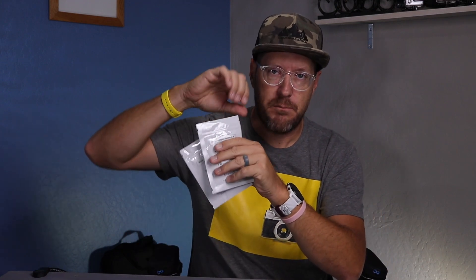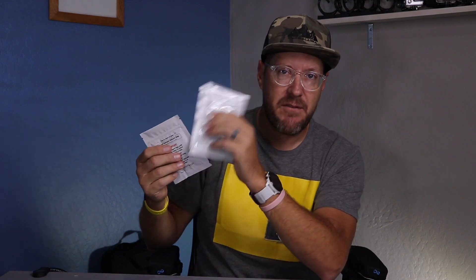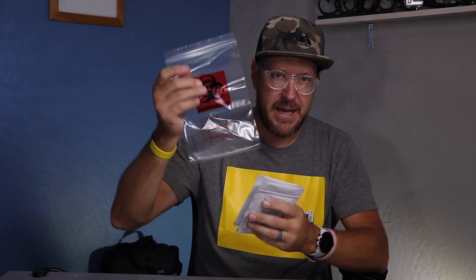It comes with a prepaid package that you're going to put them in. Before packing them away, make sure they're completely dry, then rip open the preservative pouch — leave whatever's inside there, as it helps preserve the sample on its journey back to the lab. Stick the sample card in, seal it up, put it in the biohazard bag, and then that goes into the mailer.